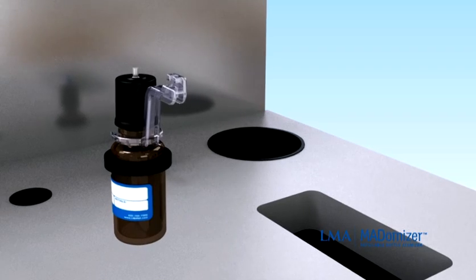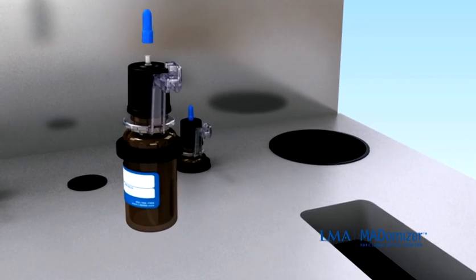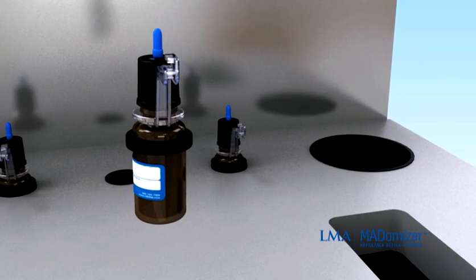Discard the applicator after each patient use. Place the protective pump cap on the pump stem during storage.